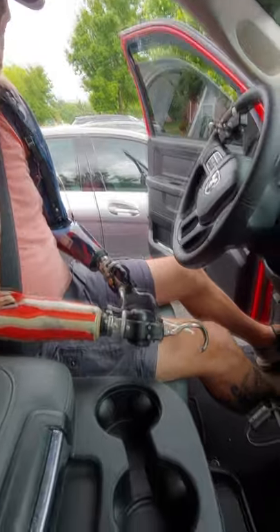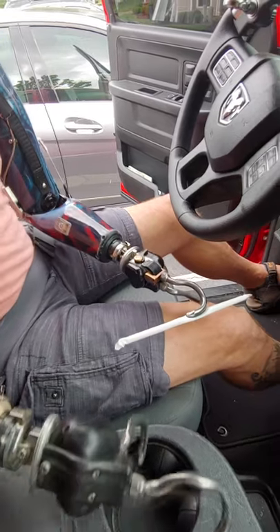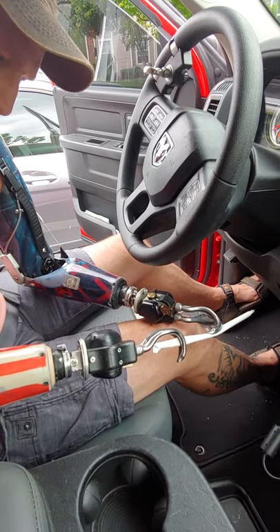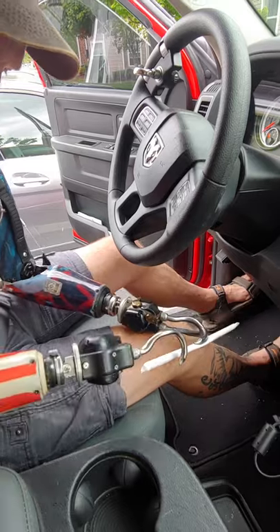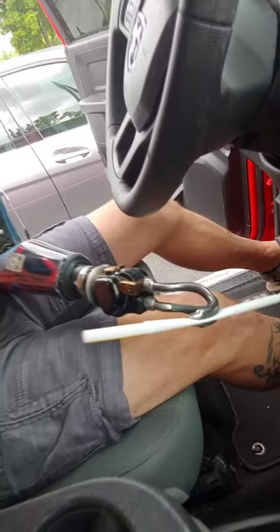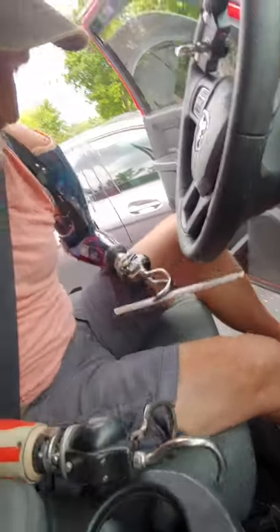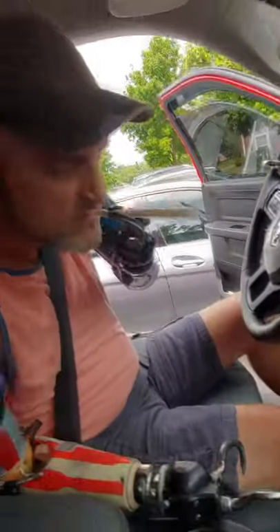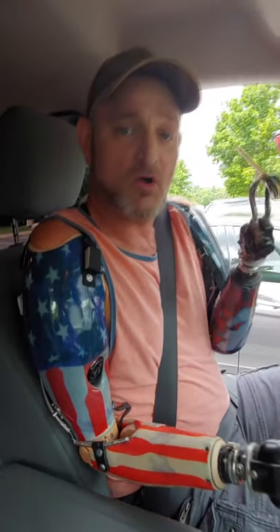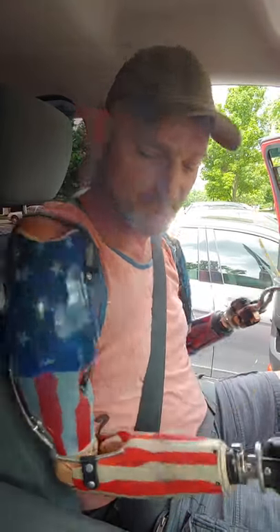This is usually the way I do it — sometimes I have to do it different ways, but the usual way: I'll just grab it, take my left hook and pinch it real hard, then take my right hook and very slightly pinch that paper just enough to pull it off the straw. Sometimes it works, sometimes it doesn't the first time. Got that one! Then I can either pull it off or stick it in my mouth and blow it off. Pretty easy. So ladies and gentlemen, that's how I open the straw and that's how I operate this vehicle. Stay positive and be safe everyone, thanks a lot!